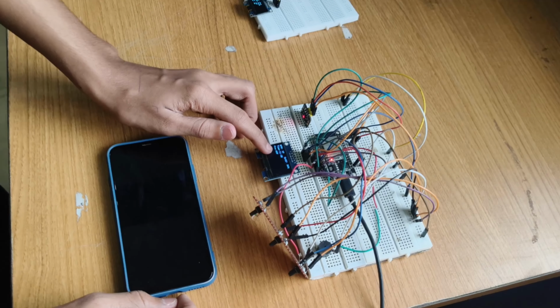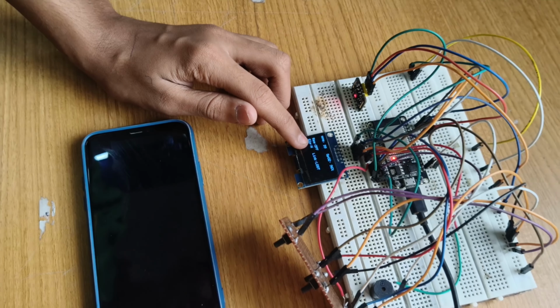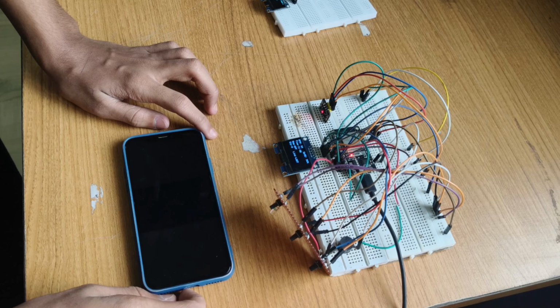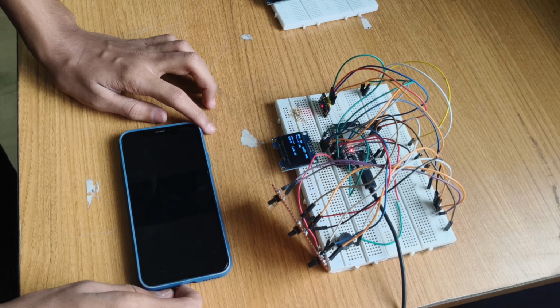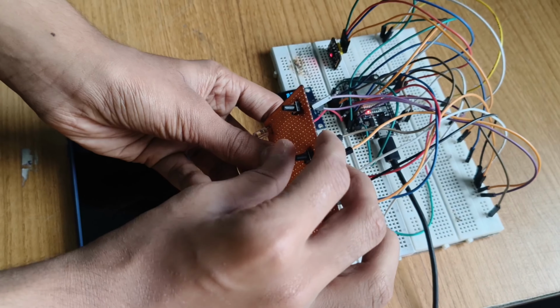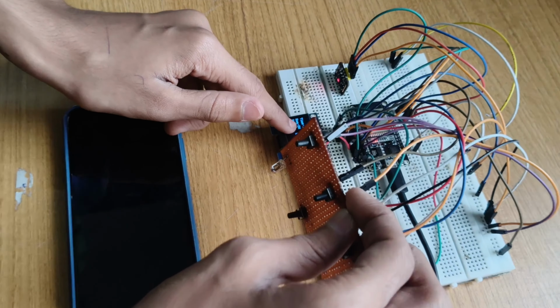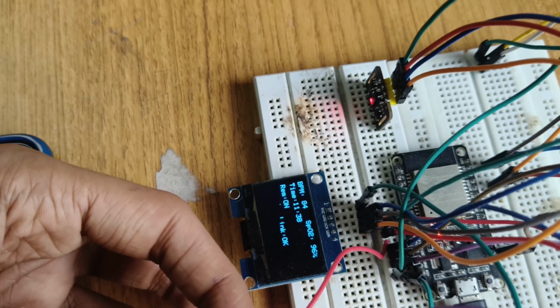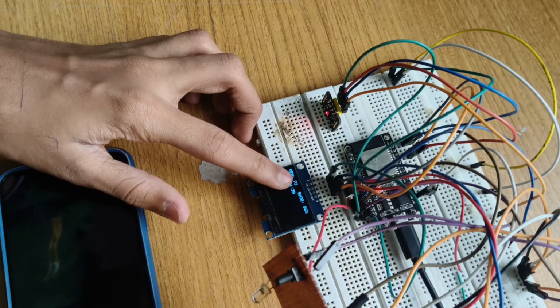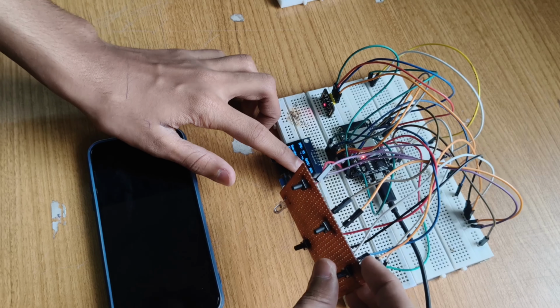As you can see on the screen, it says reminder is off. Now you may ask, what is this reminder? The reminder is that every 30 minutes it tells the user to place their finger on the pulse oximeter so it can determine the reading and take measures accordingly. So to turn that on, we can press this button. As you can see, it says reminder on. And to turn it off, now if the BPM goes under 50 or above 150 and SpO2 comes under 50, it will send an alert.